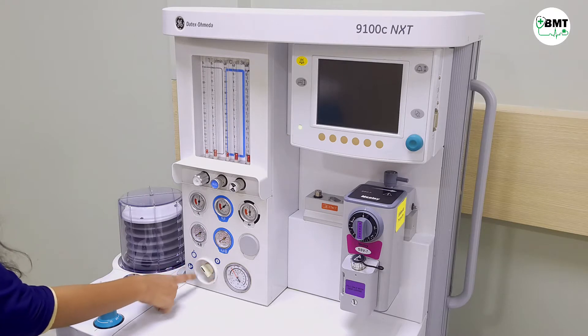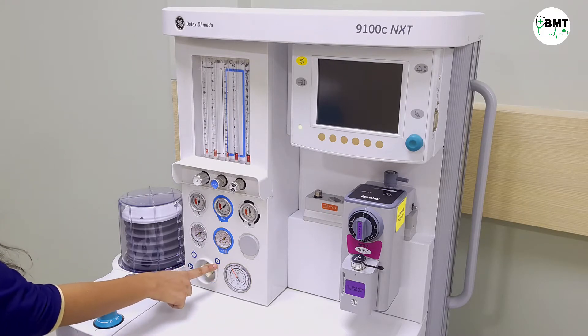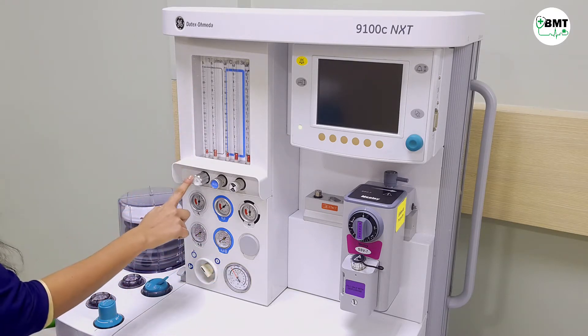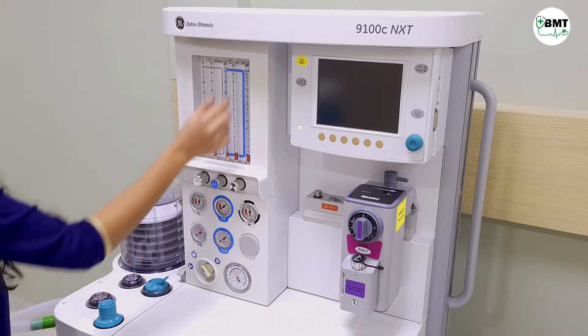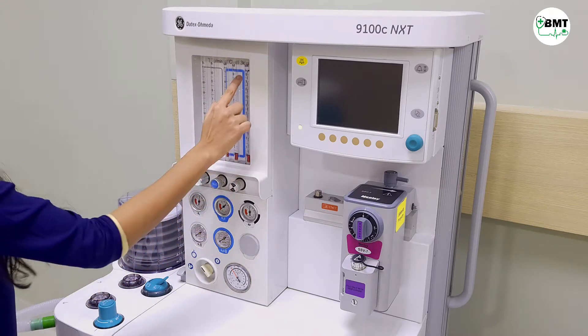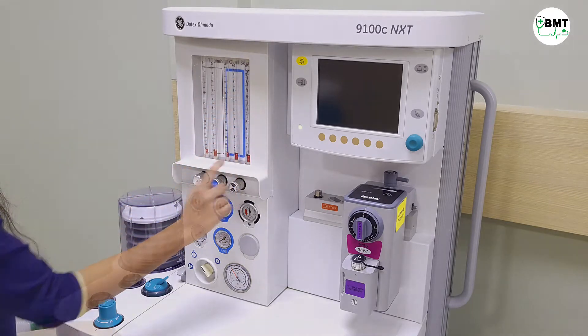This is the on/off switch. Then this is O2. These two are for nitrous and this is for air.